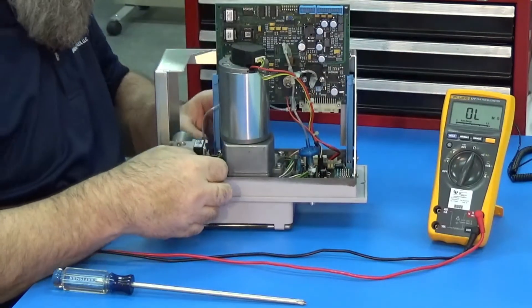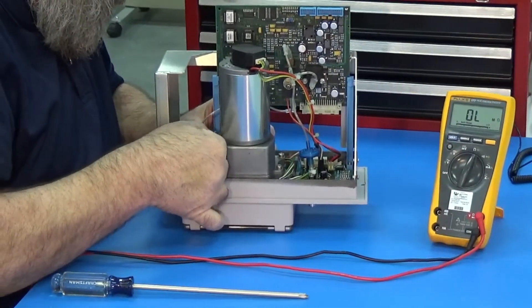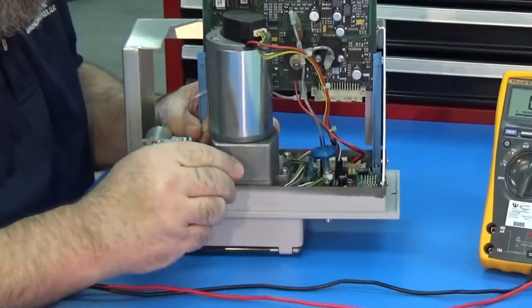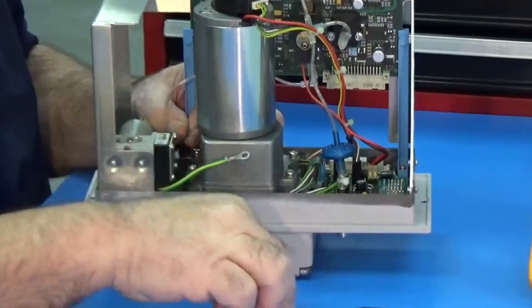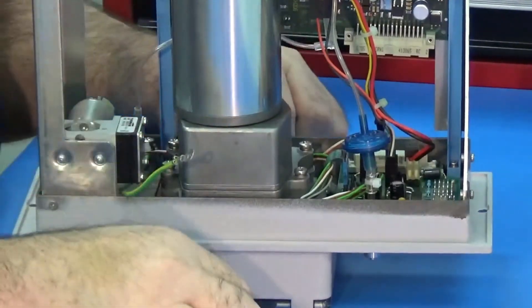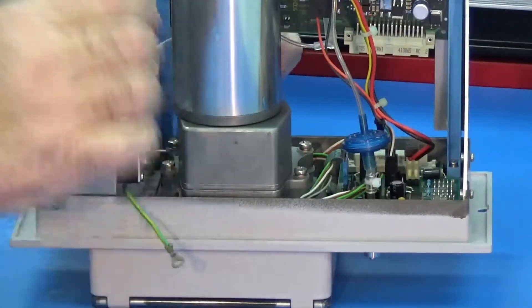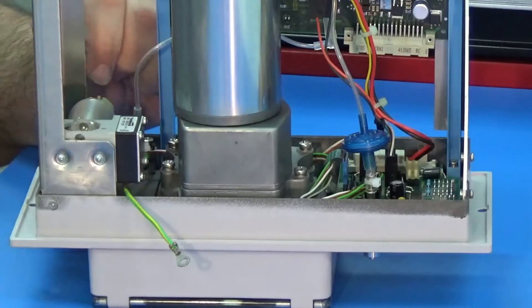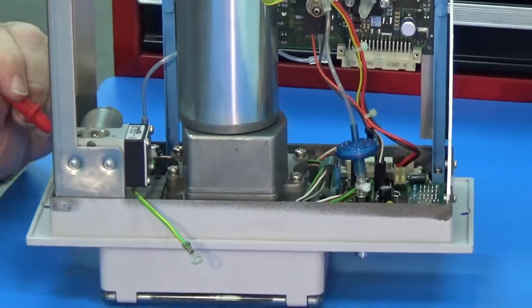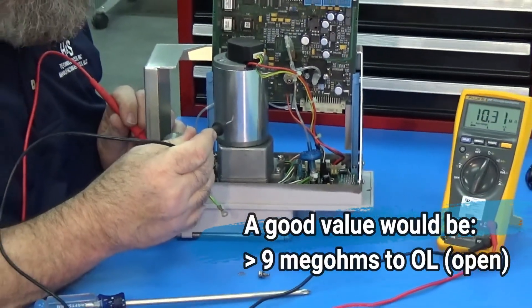Reach through down and grab the screw and washer. Try not to drop the star washer in here. Remove the ground wire. Take the screw out. Make sure the ground wire is out here where it can't be up against the chassis or the motor. And so for now we should have a motor that is open.